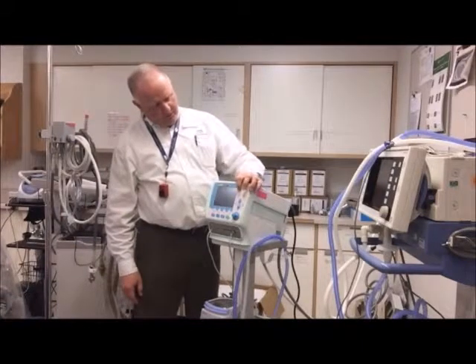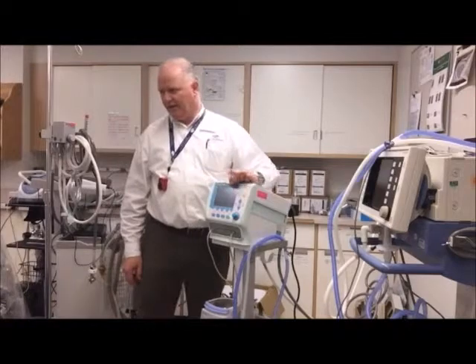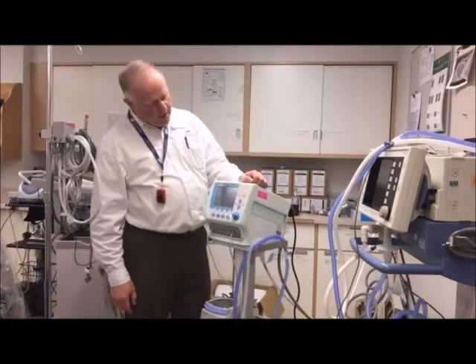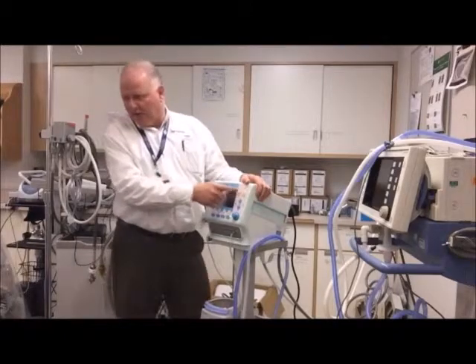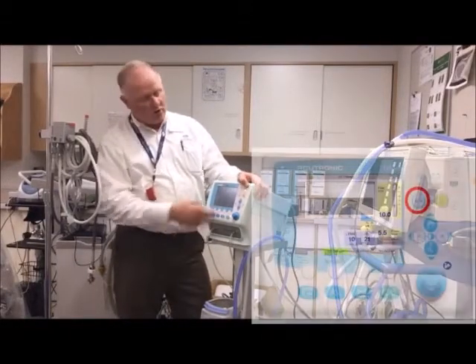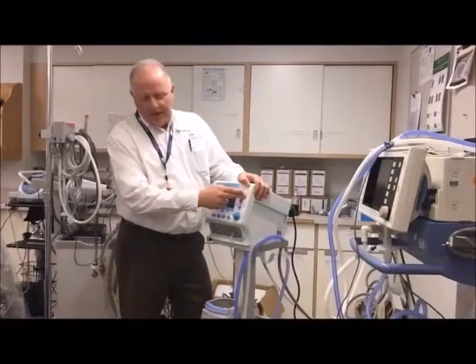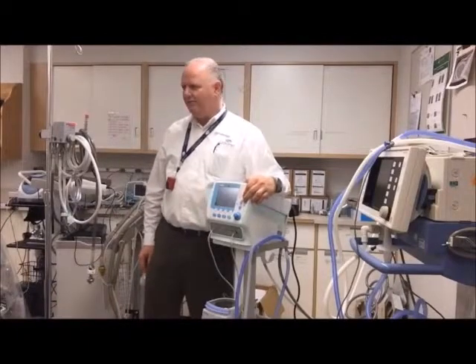This one here is an alarm indicator light, and you also get an alarm bar up here. I think this is the primary alarm indicator. This menu button here will get you into your alarm menu to actually set alarms. To adjust an alarm, hit that button and it'll take you there. That button is your alarm silence — the nurses' favorite button.